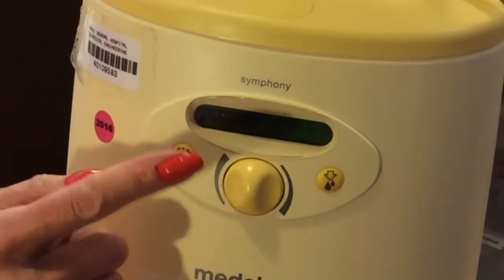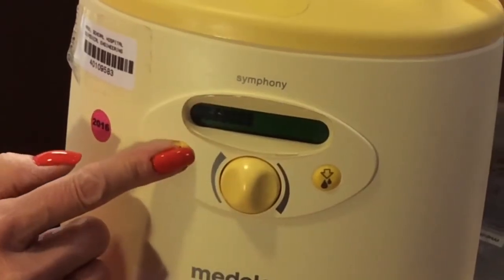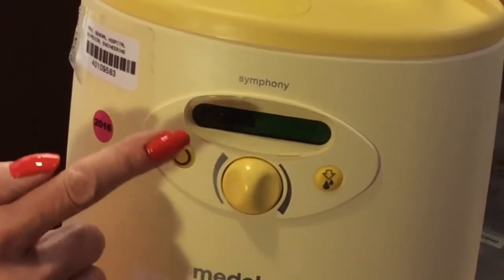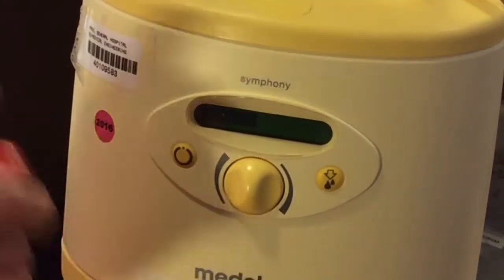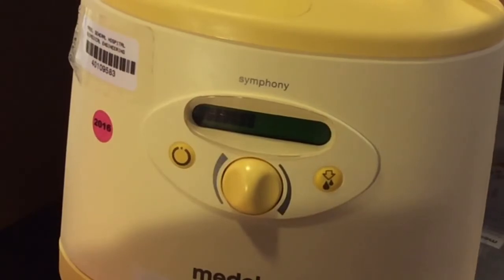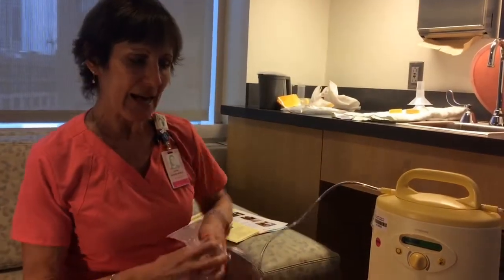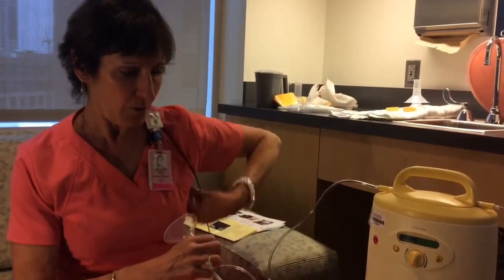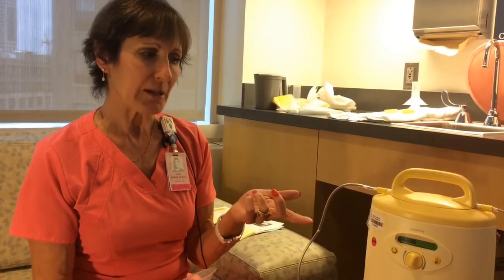The maintain program does not beep and shut off at fifteen minutes. Mom needs to pump until her milk stops dripping and for one minute after, but not longer than thirty minutes. While moms are pumping, they need to be using their hands to massage to help with drainage, and at the end of pumping to completely empty the breast. Milk left behind can cause blocked milk ducts and decreased milk supply.